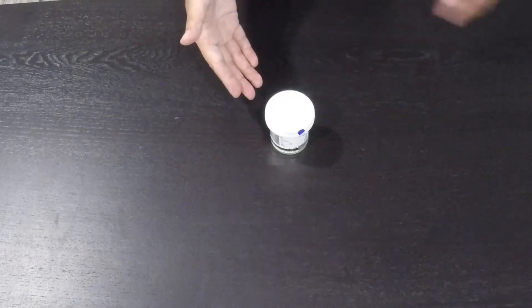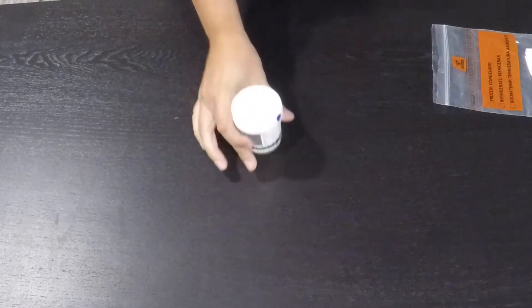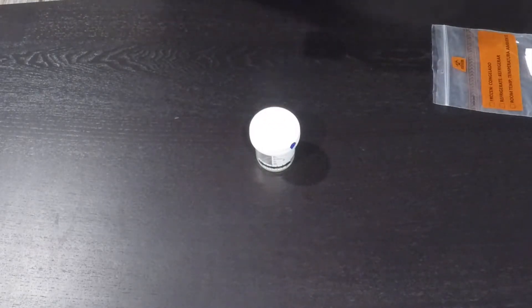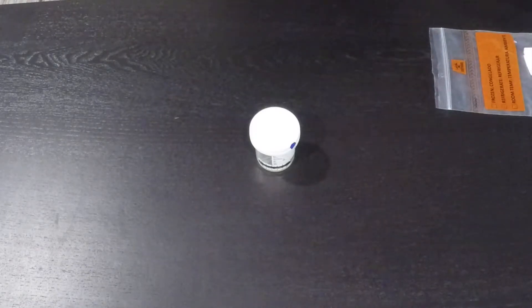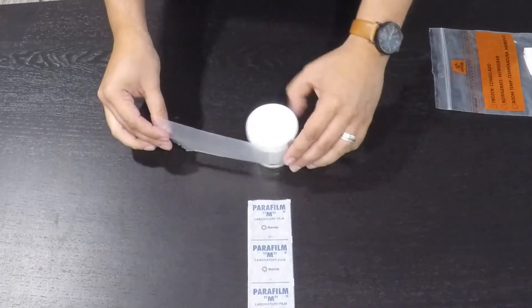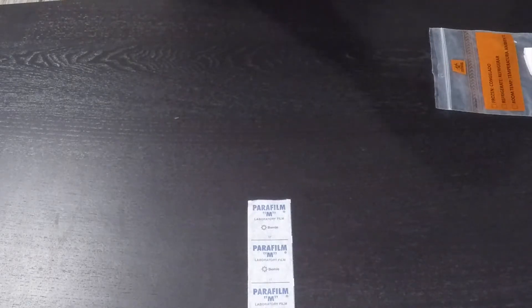Once the urine is provided, the cup must be secured and tightened. The MA needs to make sure that the cup has clicked twice. Once all the correct information has been provided, the MA will grab parafilm and tape it across the cup.